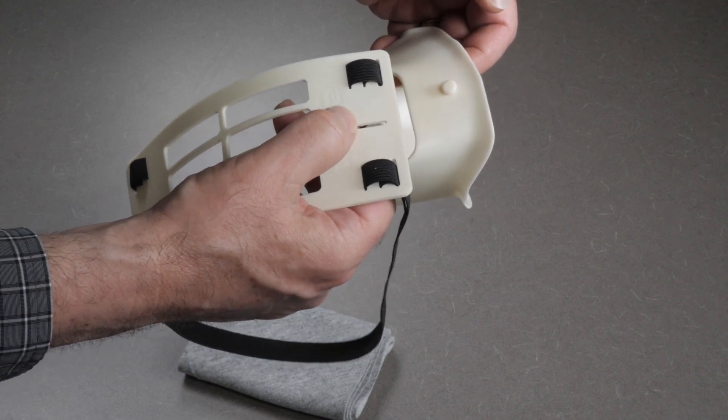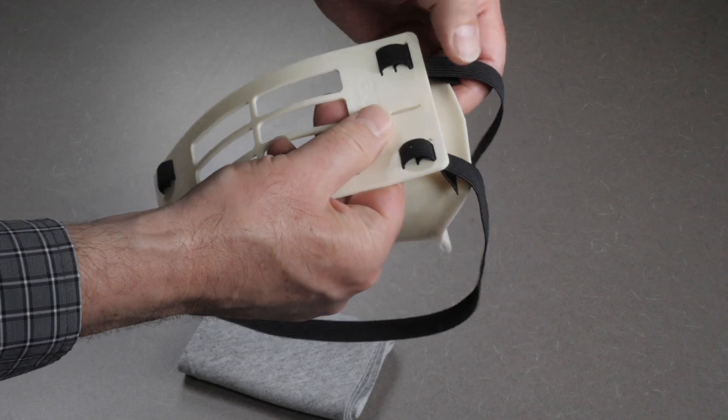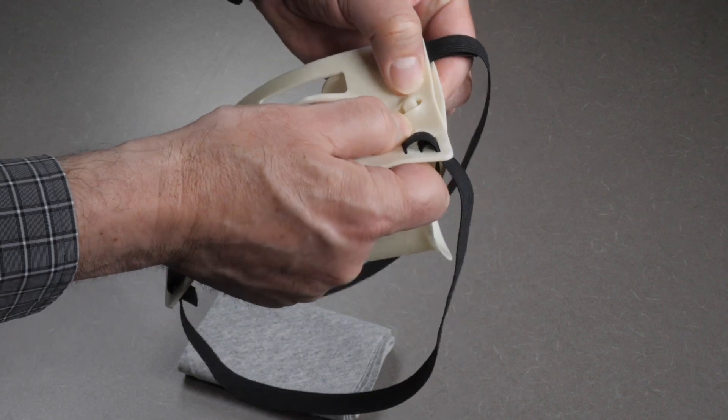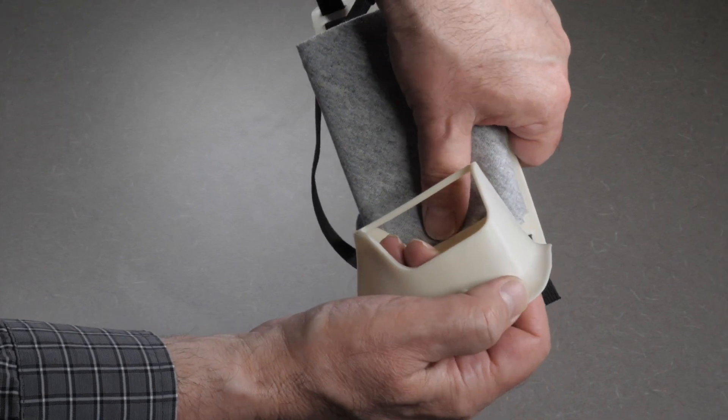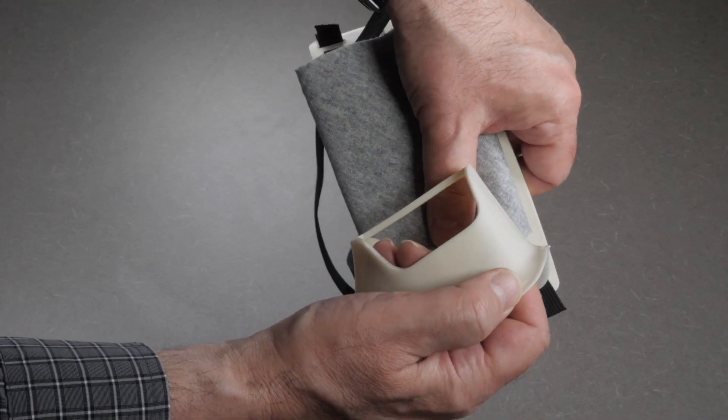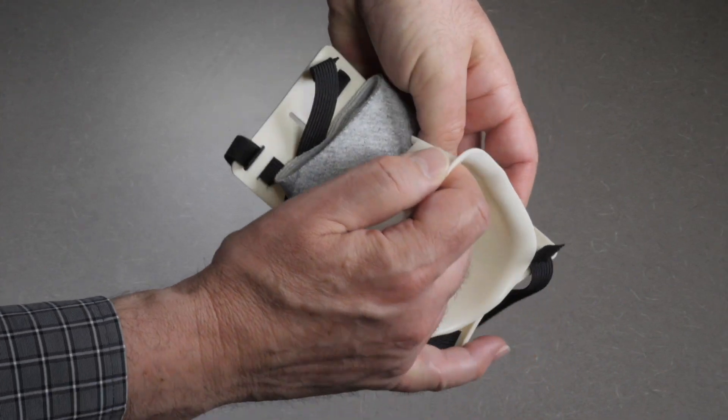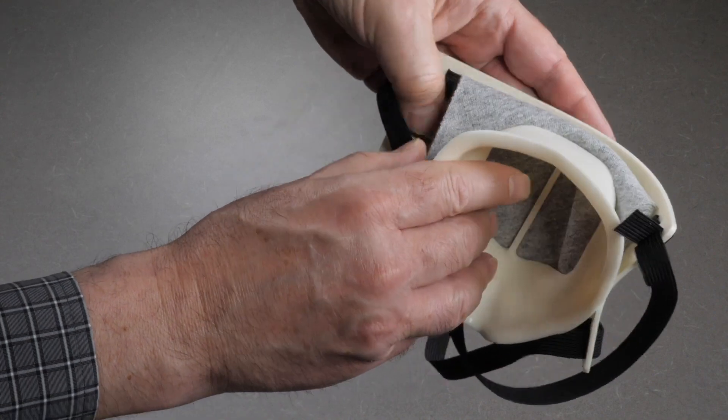Place one side of the base button in one side of the cover button hole, then tuck the filter close to the buttoned area between the base and the cover. Then roll the cover over the base with the filter sandwiched between to the other side.